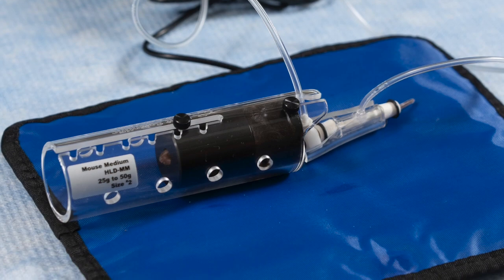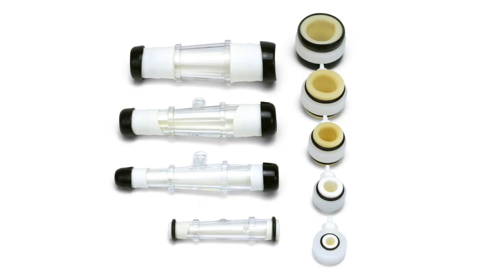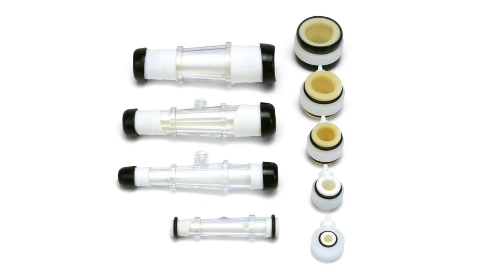cuffs and bladders should be replaced regularly. CODA cuffs and bladders have a shelf life of about one year, and they can develop leaks over time.